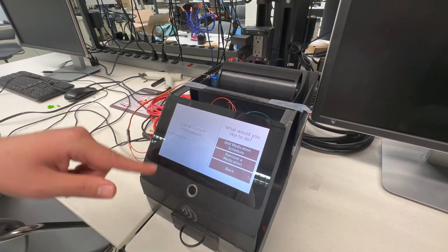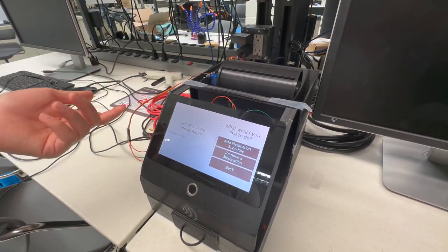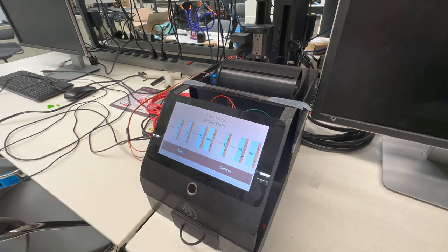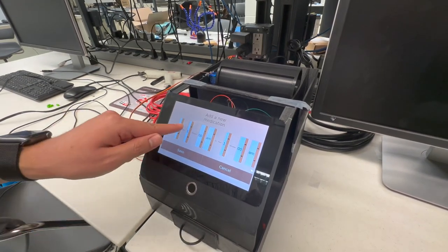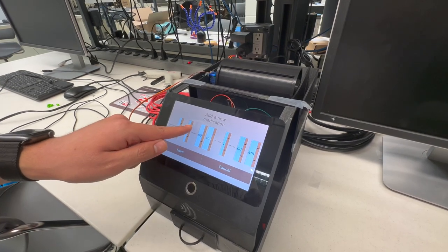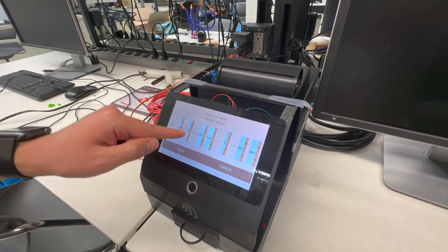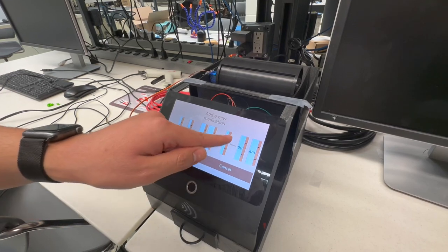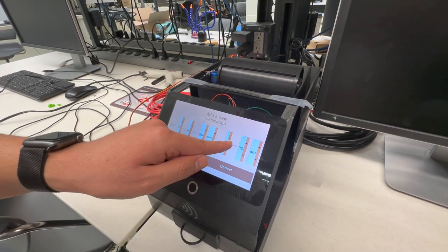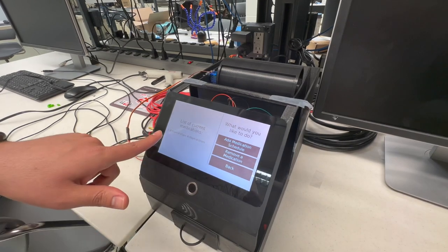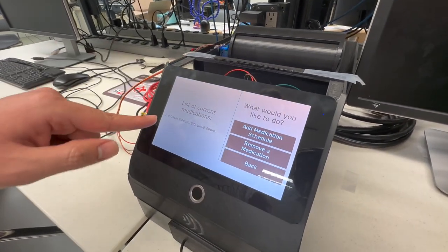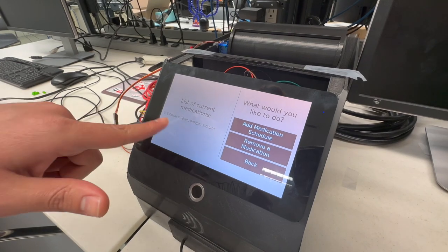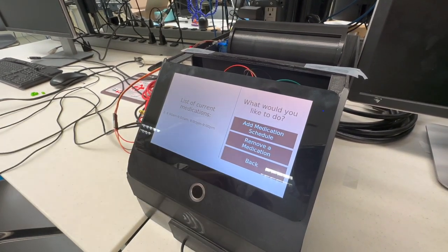Sometimes people have to take a medication more than once a day. You can go back to the add medication schedule menu, select the same chamber that you selected before, and then select the second range for the medication. Let's say for this one it's from 8 p.m. to 9 p.m. Once you click save, the current list shows that for medication number two you have a range from 8 a.m. to 9 a.m. and 8 p.m. to 9 p.m.